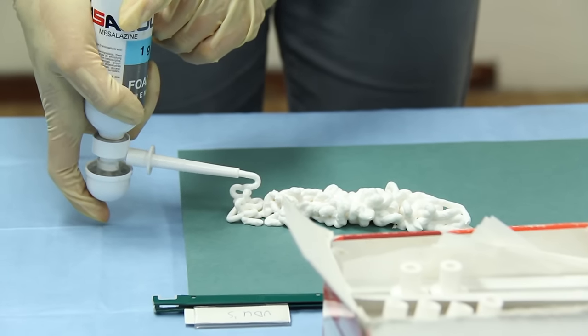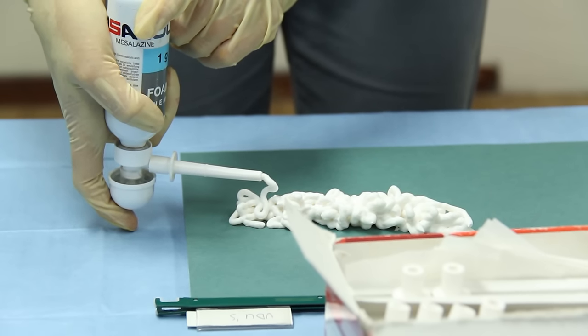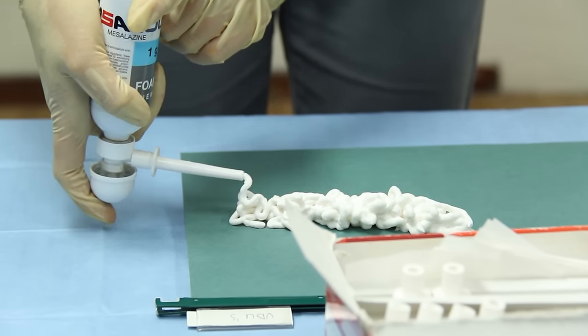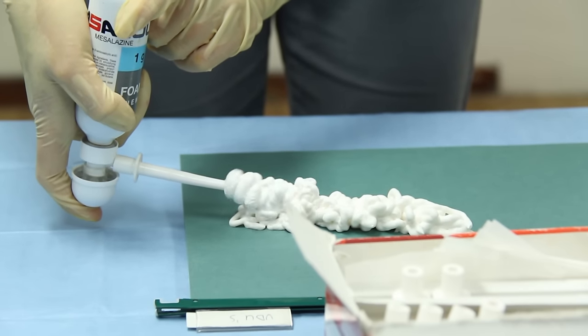They need to hold it in for 10 to 15 seconds, and if they need a second dose they don't need to take it back out. They can keep it in and just press again and release.